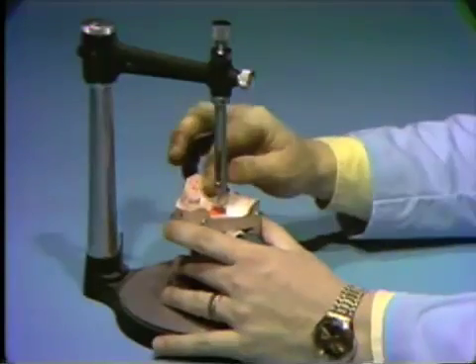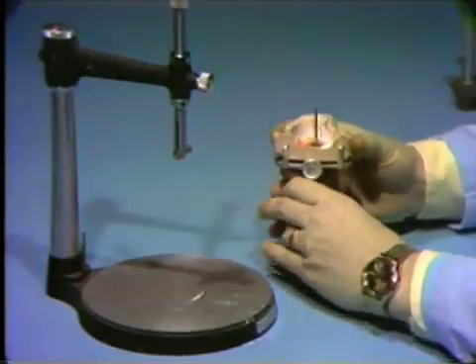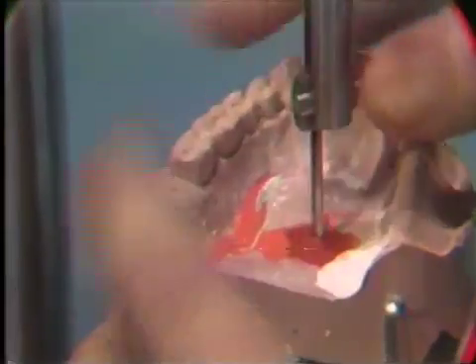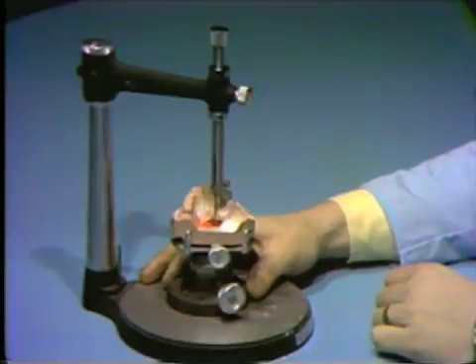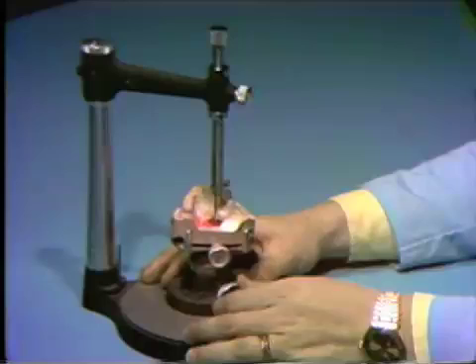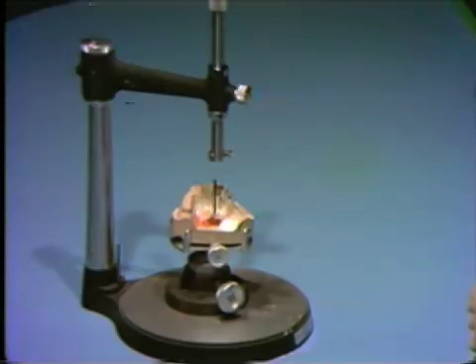Your path of insertion and removal is now preserved. If you remove the cast from the surveyor table and want to return it in this same survey position, place the cast back on the surveyor table, insert the burr into the spindle holder, lock the burr in place, loosen the universal joint on the table, and carefully place the base of the table so it is flush with the base of the surveyor. Tighten the universal joint. When you release the burr, your cast is in the correct survey position for the path of insertion and removal.